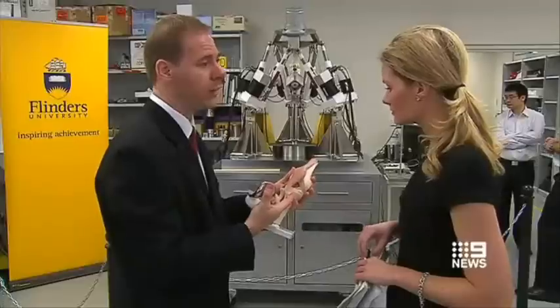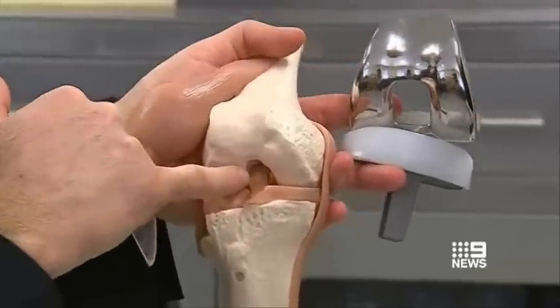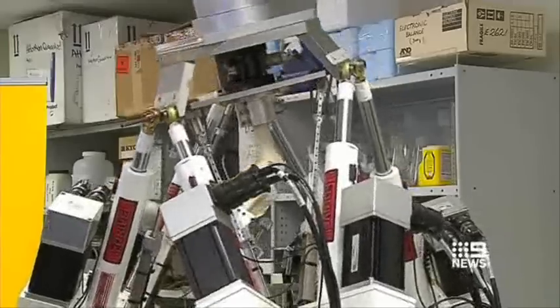So when we're doing manual labour lifting, we tend to do twisting and bending motions, and so we're interested in simulating that motion in the hexapod for many thousands of cycles. On average, hip and knee replacements last around ten years, and it's hoped the robot will help develop more robust implants.